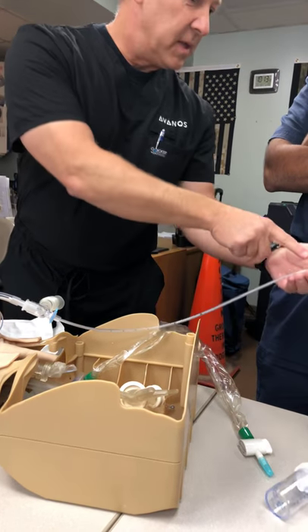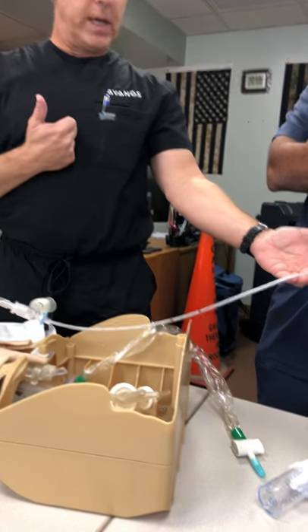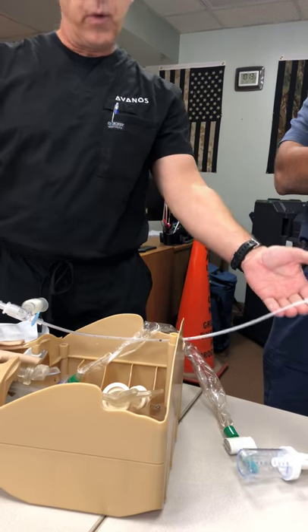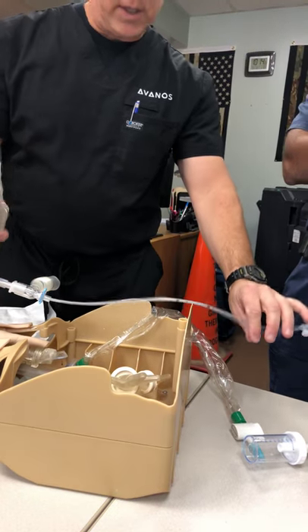This supplemental oxygen port tells us which way our coude tip is going. If it's pointed towards me, it's going to go to the left. If it's pointed towards John, it's going to go to the right. And you can rotate that, and it has a really good one-to-one torque.